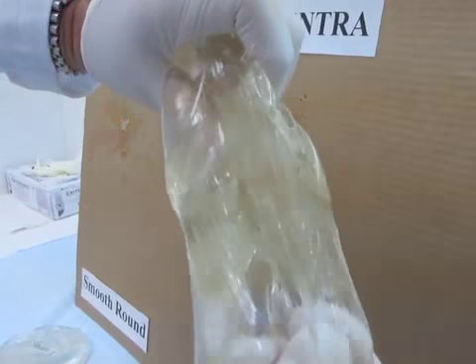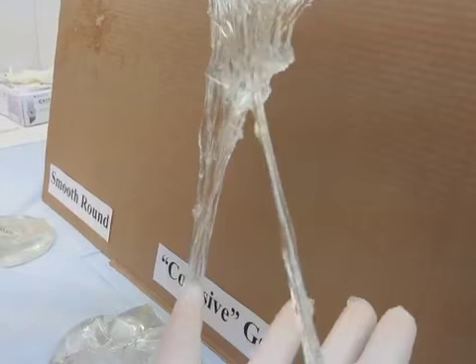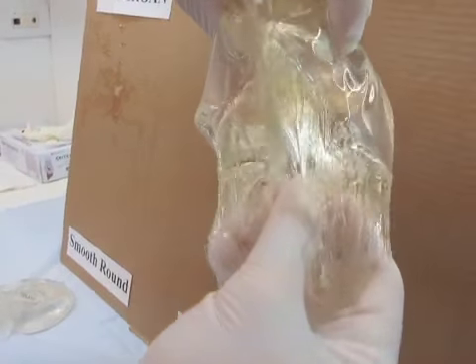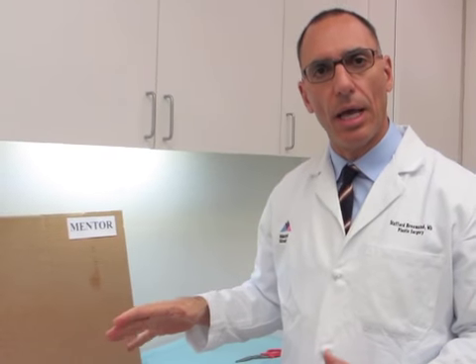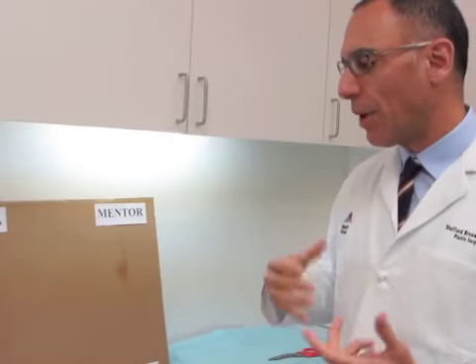And now we're going to go to the Mentor implant. Again, you see it sticks. They all have a tendency to stick. They're very gelatinous. And that has a good cohesiveness to it as well. Some of the material comes off. It fragments, but it's pretty good. So what we did today was we looked at the three major manufacturers of FDA-approved implants: the Allergan, Sientra, and the Mentor implants to see what happens when you cut them open. They're all cohesive gel and they all have subtly different properties, but they're all really good. But let's be honest, they were all pretty similar. They felt similar, top notch, quality products. If I had to rate them, unscientific, just what we did here today, it would be Sientra 1, Mentor 2, and Allergan 3.